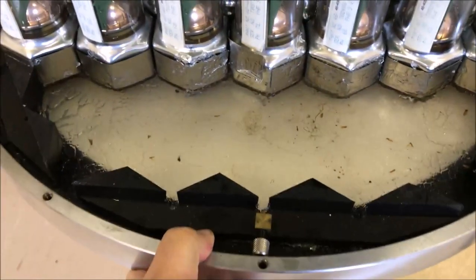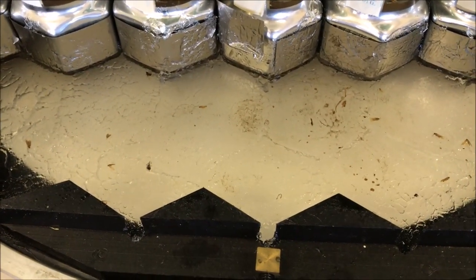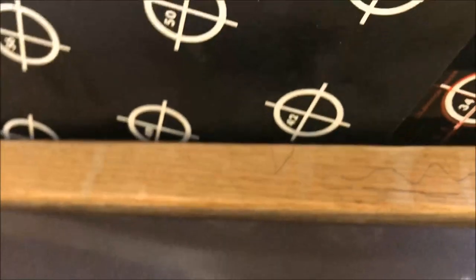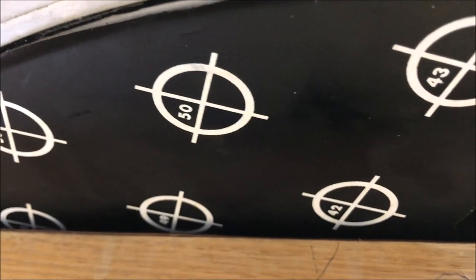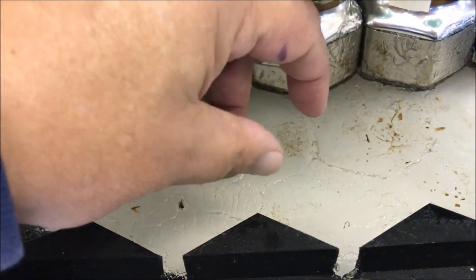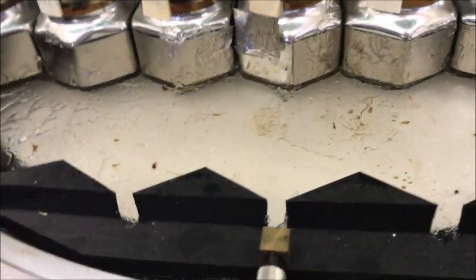The crystal is that white material in there — it's actually translucent, so light passes through it with a slight frosted quality. It's got a covering on it used for QC, with markers where we know a photomultiplier tube sits underneath. If I actually held a radioactive source on the other side and turned the lights down, you would get a light purple hue — a little bit of light purple scintillation on the other side. That's why it's called a scintillation detector.